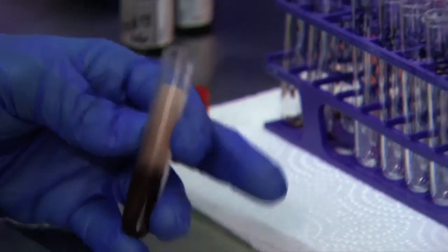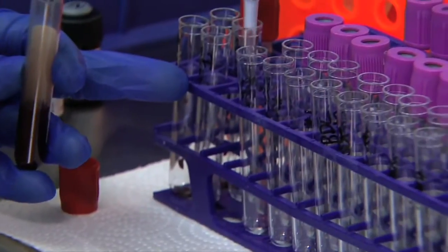The software that's used to run a lot of the current flow cytometers is very difficult, so the people that run the units really need to have a lot of expertise.